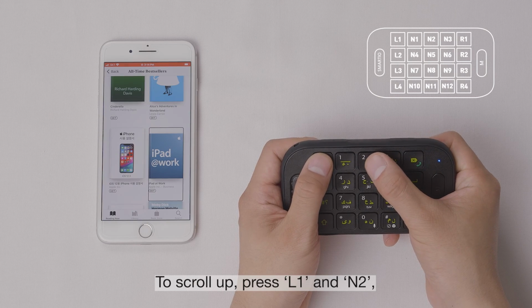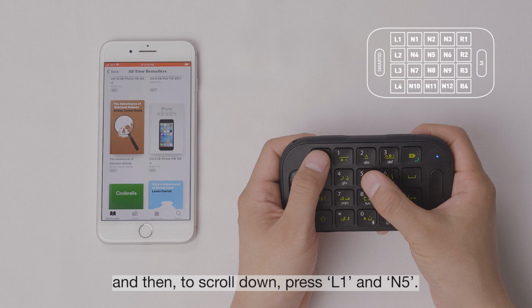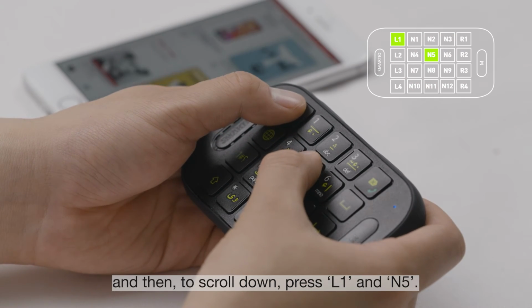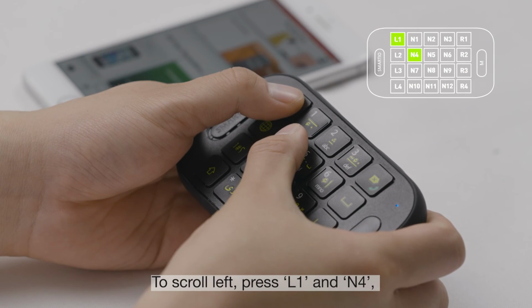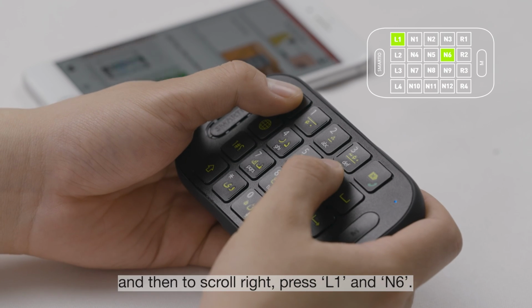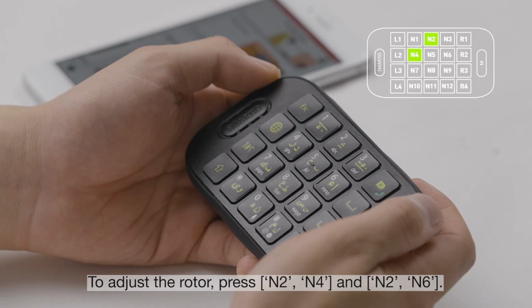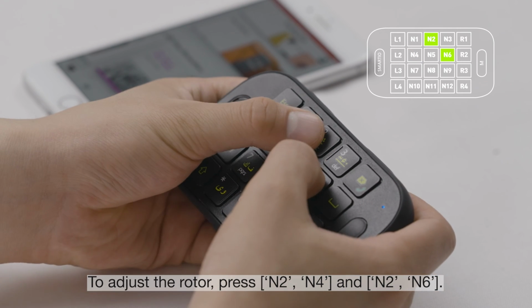To scroll up, press L1 and N2, and then to scroll down, press L1 and N5. To scroll left, press L1 and N4, and then to scroll right, press L1 and N6. To adjust the rotor, press N2, N4, and N2, N6.